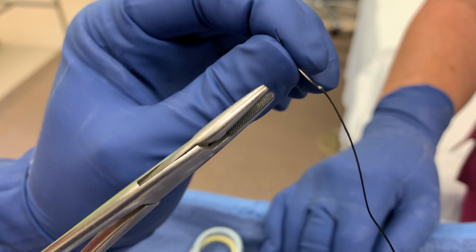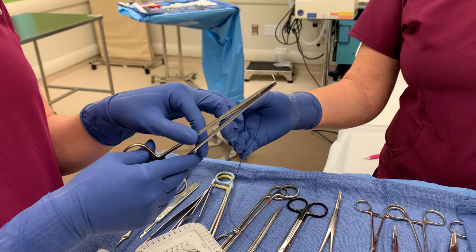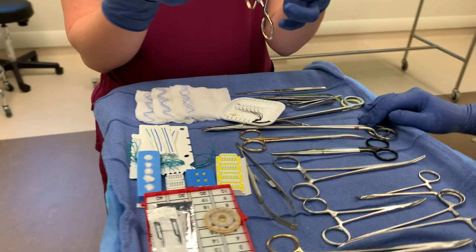You never want to grasp right here on the swedged end — that's the weakest part of the needle. You always want to come in at least one-third; some surgeons will tell you one-half of the needle. Hear that click — I ratcheted it on the needle driver. You pass it with the tail behind her hand, and now that's exactly how she's going to be using that suture. And that is a stick tie.